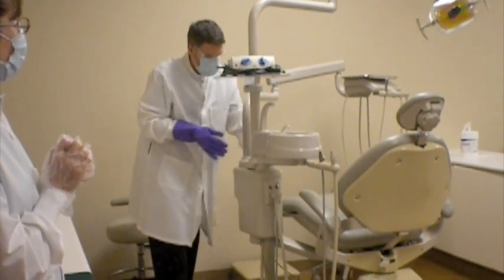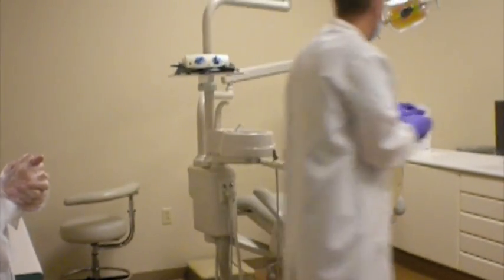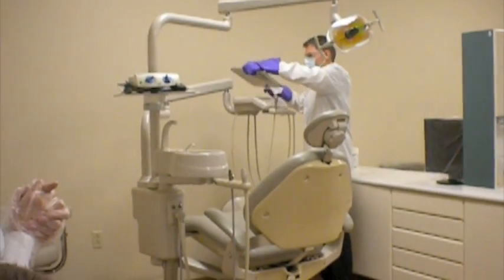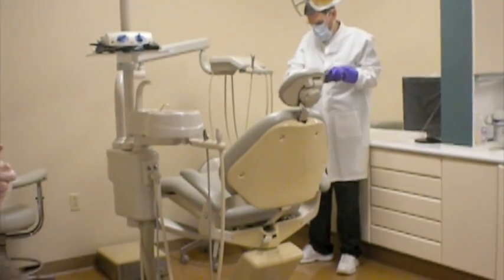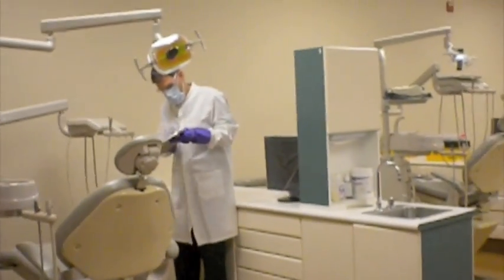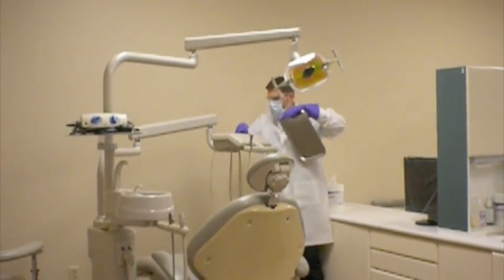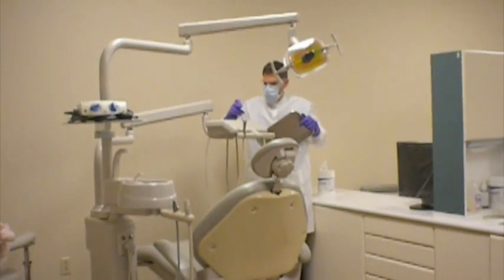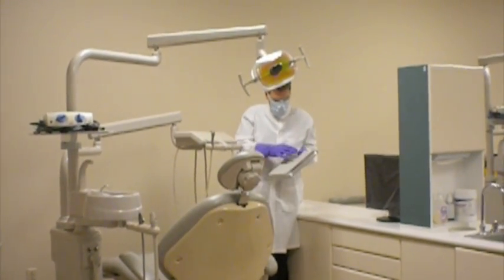When he's complete with that, he'll move back over to the bracket tray, beginning with the actual tray on top. He'll wipe the top of the tray, the sides of the tray, the back of the tray. He'll wipe the top of what we call the skid pad that holds the tray onto the actual unit. On the top of it, he'll wipe it, and then he'll pick it up and turn it over and hold it with his thumb on the bottom of the tray to wipe the bottom of it.